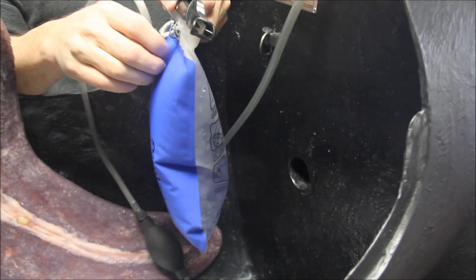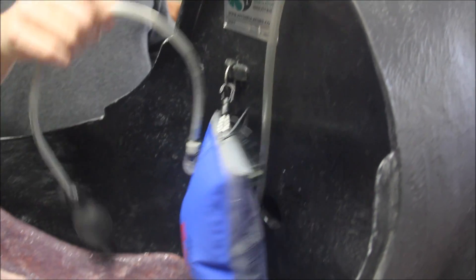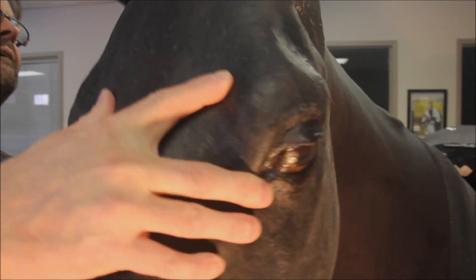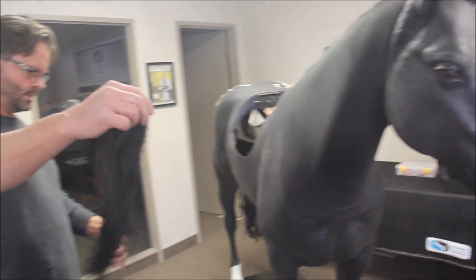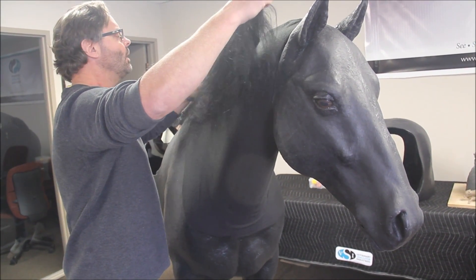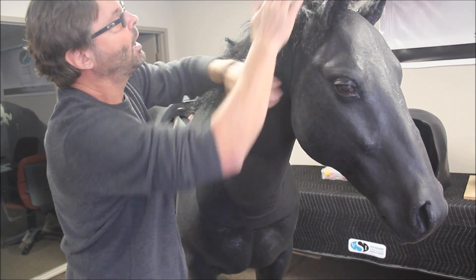The veins are represented by 50 cm long thin-walled latex tubing which can endure multiple punctures. The head uses the same attachment type as the neck and simply slides onto the receiver in the neck. The horse also features an open mouth for applying a bridle. The neck hide or covering is a piece of fabric that slides over the neck to cover the veins and intramuscular pads. The mane is simply attached with velcro.